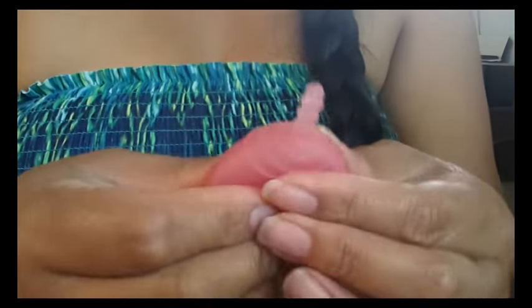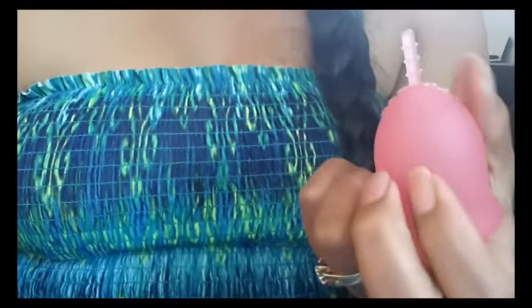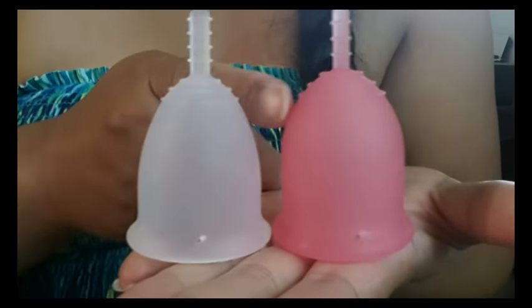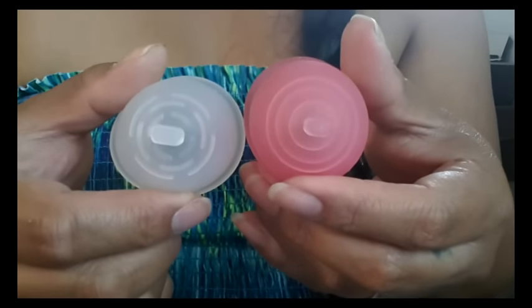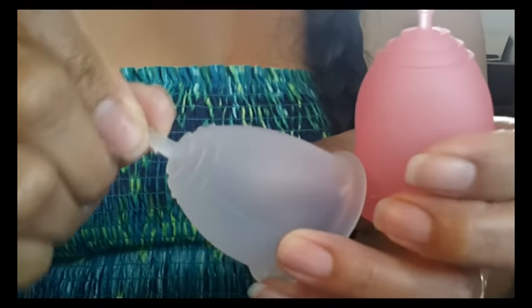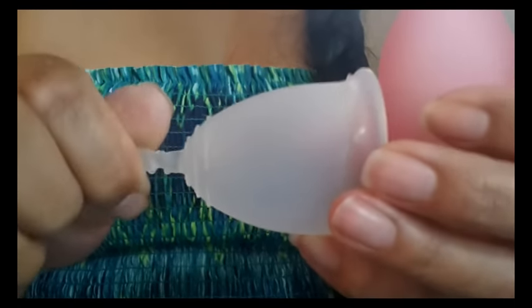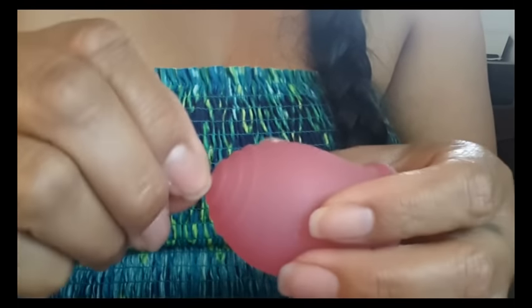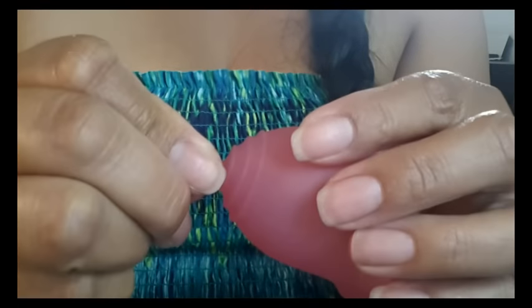It's an overall really nicely well-made cup. It's not too soft and it doesn't feel really firm like rock hard. The closest cup I have that it resembles is the Flare cup — the only difference is the Lena bulges out just a bit more at the top. The stems are quite similar too. On the Flare, when I pinch down on it, it leaves marks on my fingers — it's very stiff. With the Lena cup, I don't think people are going to have so much of a problem with the stem.